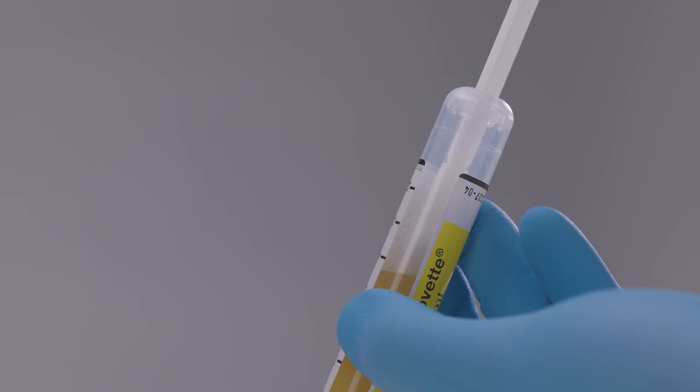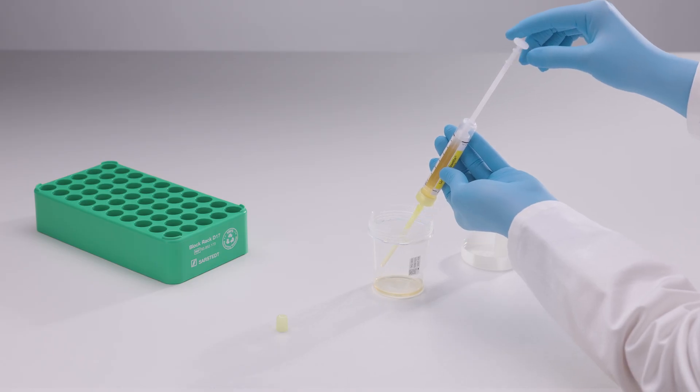Urine will still be present in the collection tip. This can hygienically be removed as follows.